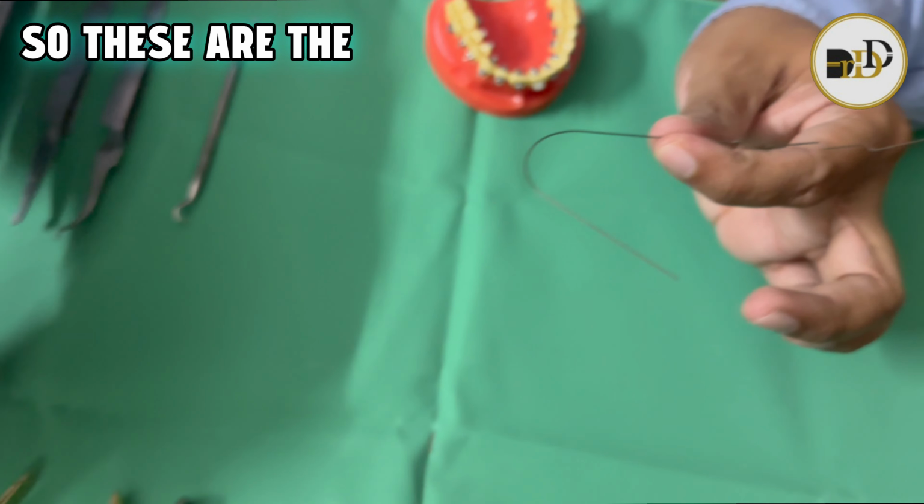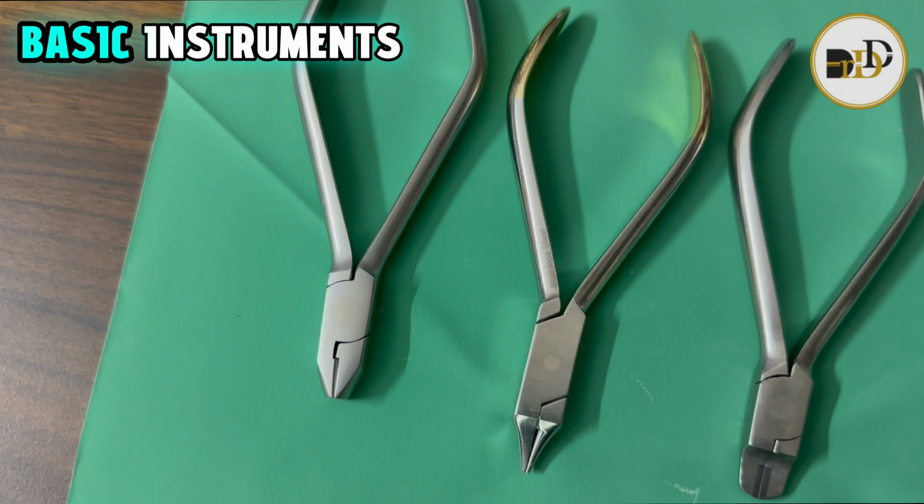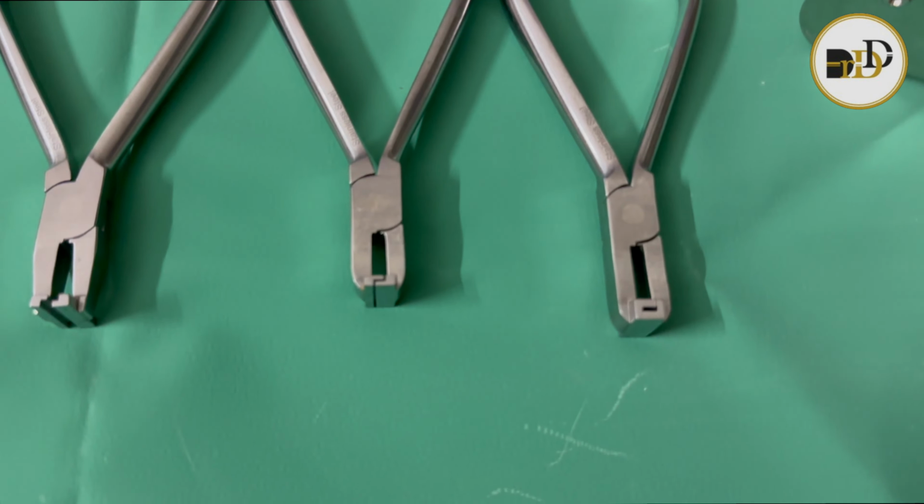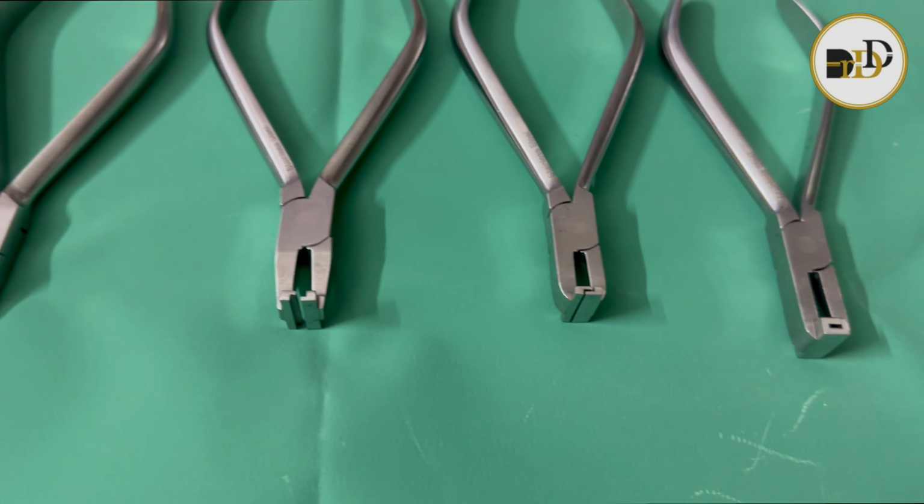So these are the basic instruments required for making the bends.